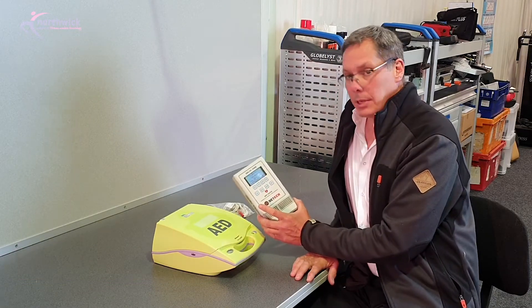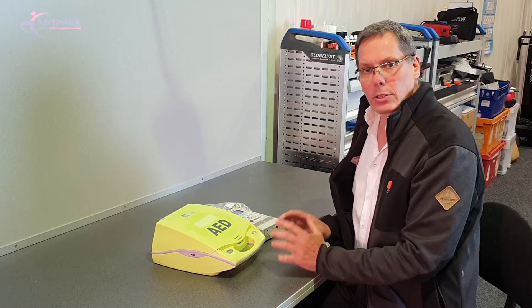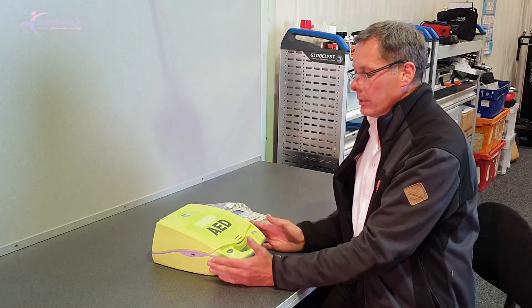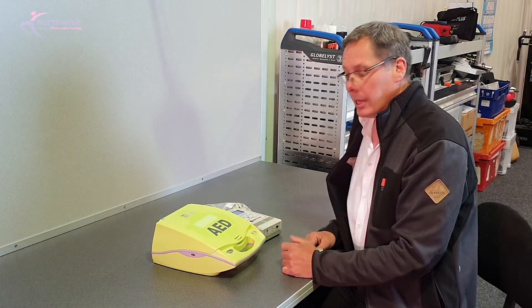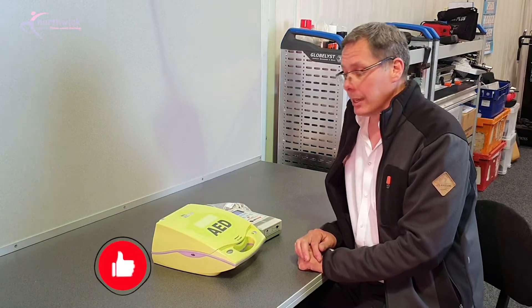So I'm just going to show you the two main tests that we would do when we test these on site, just to give you an idea of what the defibrillator is actually capable of doing.